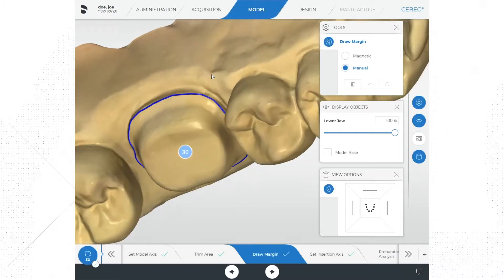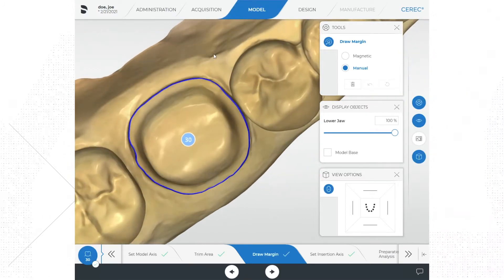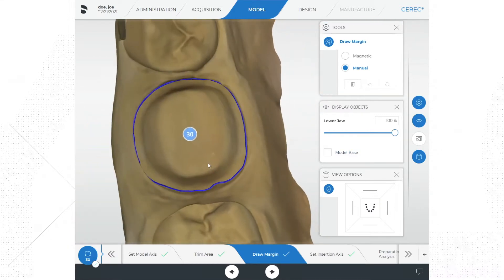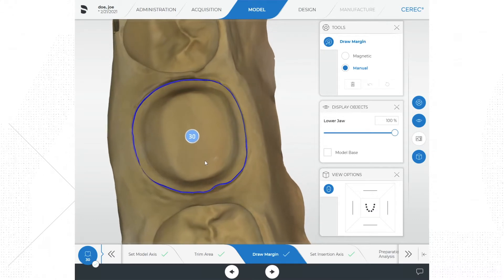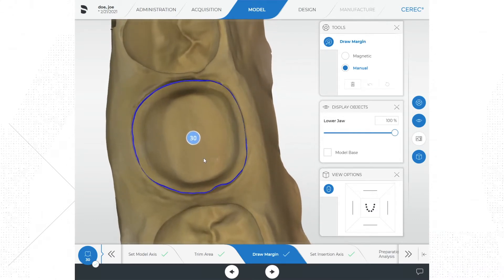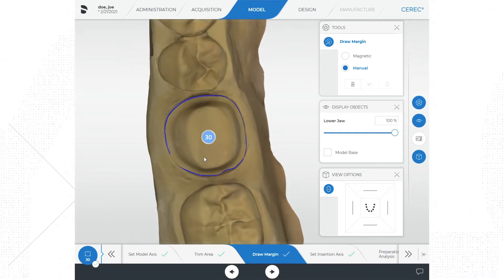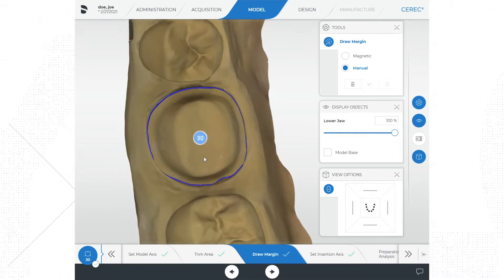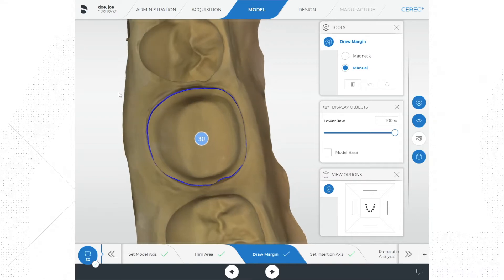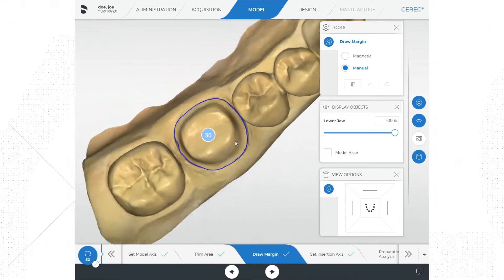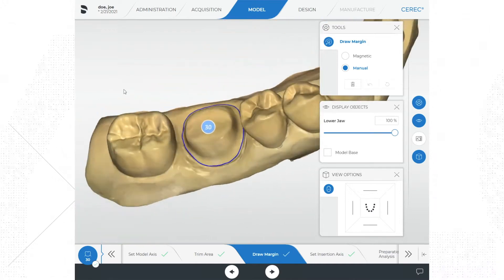Another thing you can do is turn the stone model display off if it is active, and you can rotate your digital impression upside down. What does this look like when you view the margin from underneath the impression? If you set a PVS or traditional impression you are correct — it may help some people to view the digital impression in this way until you get the hang of the software. Once you have the margin traced and you are happy with the way it looks, you are ready to move on.